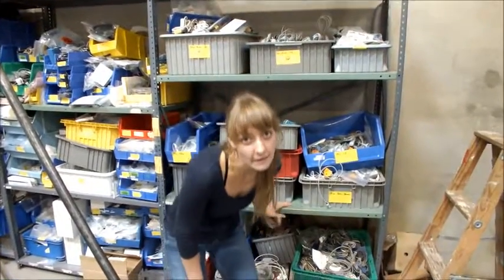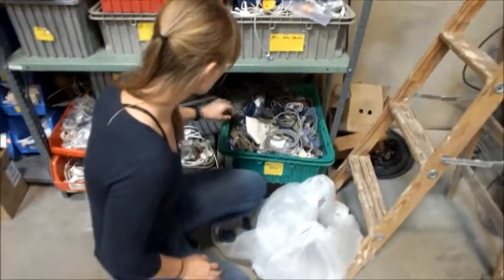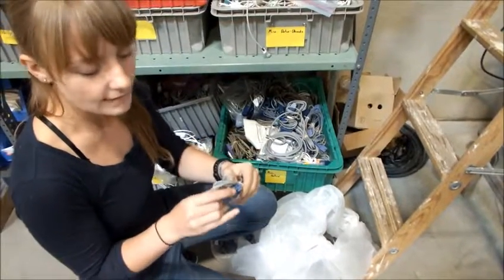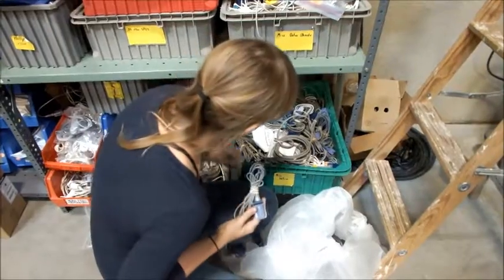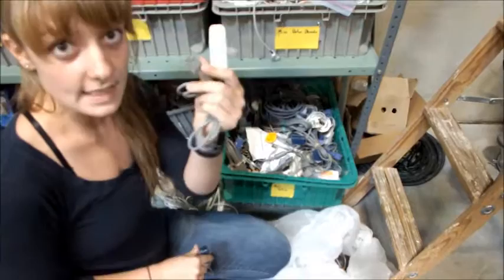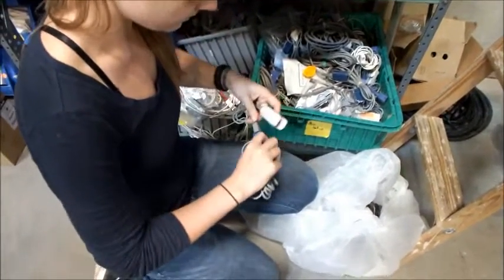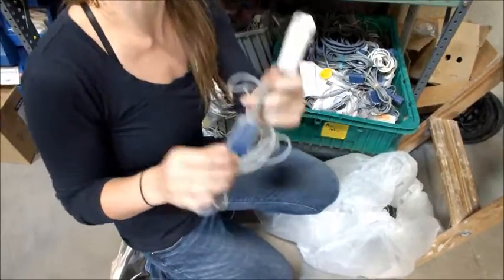You're going to need to look in this area for an SpO2 attachment. Make sure when you find the attachment that you find two parts: the extension cord that can attach to your machine and has this lock, and then a finger probe. You want to make sure that this connection can lock into this mechanism and the lock can clip over the device.